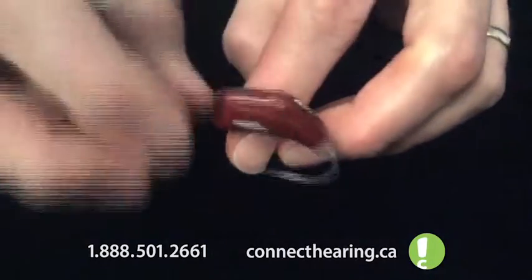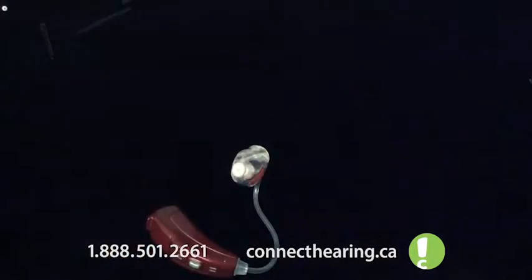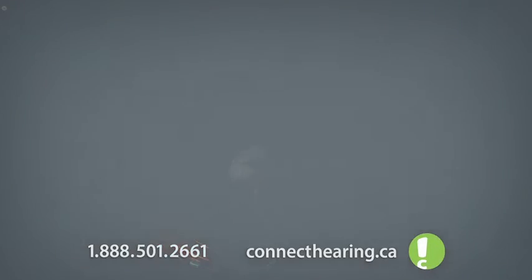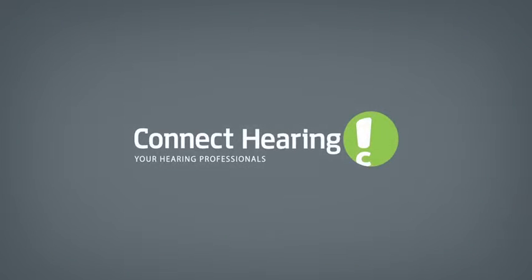Now this tubing is something that we change in office usually about every six months. If you need some, we can get them for you. And if you can't take care of this yourself, with our Sound Care Assurance, give us a call, come into one of the Connect offices and we'll take care of it for you. Thank you.